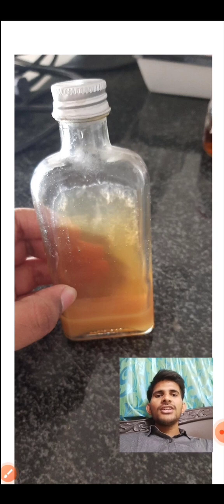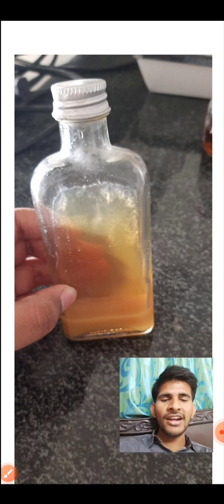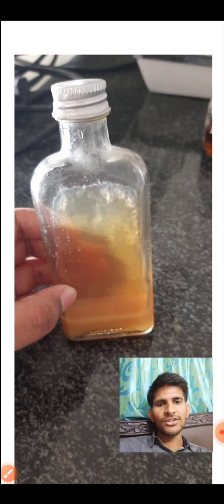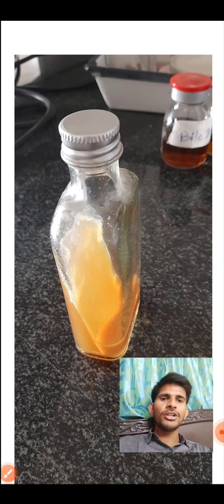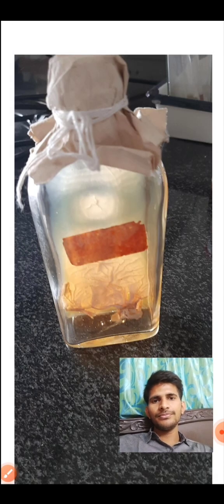You are seeing here both solid media and liquid media in the same bottle. Then it is biphasic. Bi means two, solid and liquid: biphasic medium. Why are both solid and liquid there? Because agar is added. If more agar is added, it will become solid. If less, it will become semi-solid. If very little, it will become liquid. This is Castaneda's biphasic medium. You can see both liquid and solid are there.